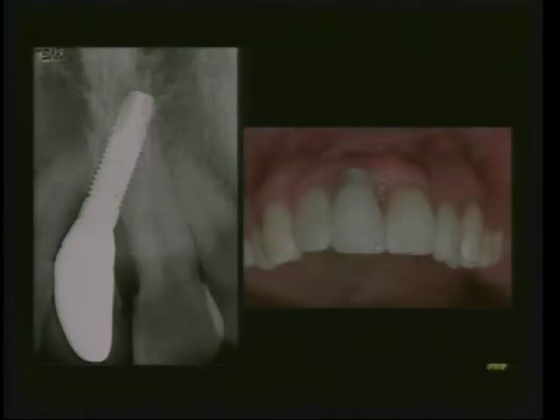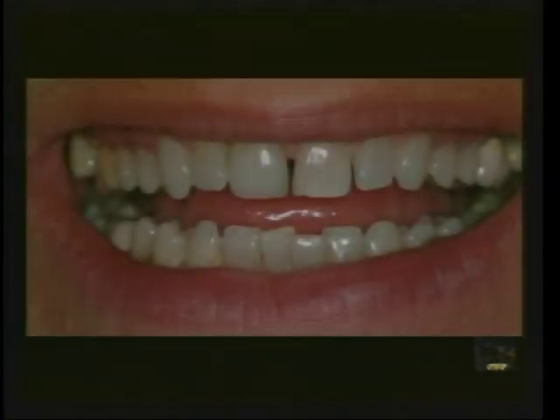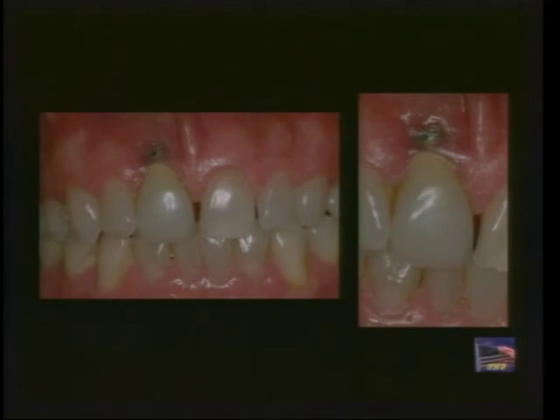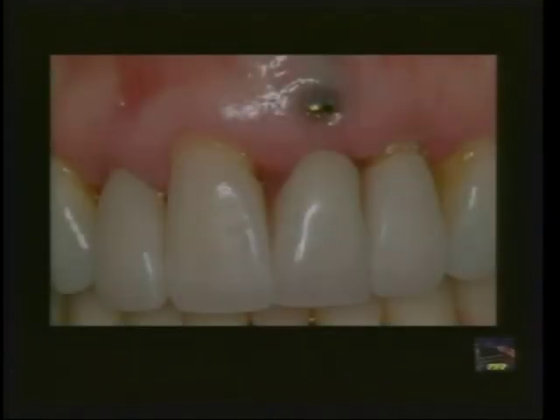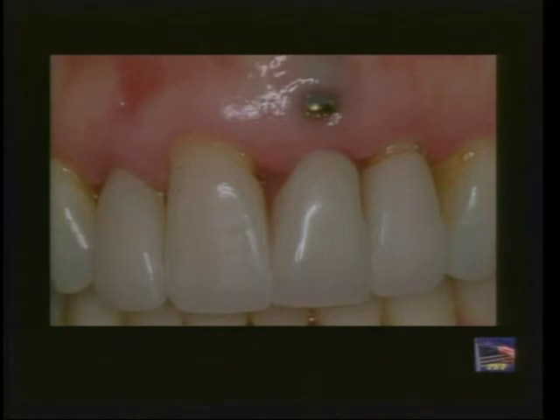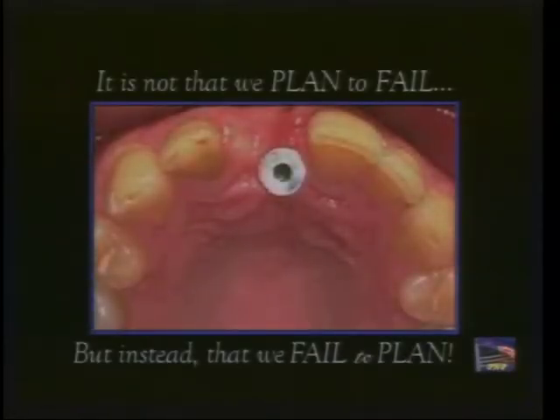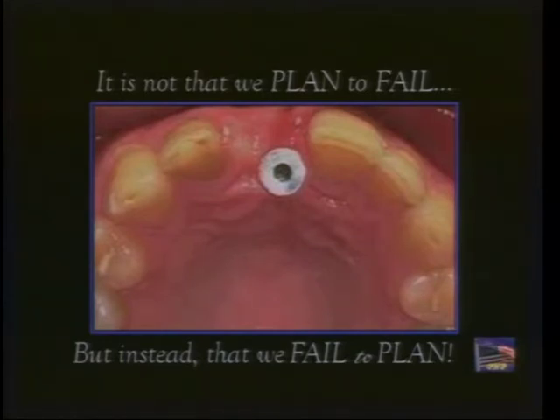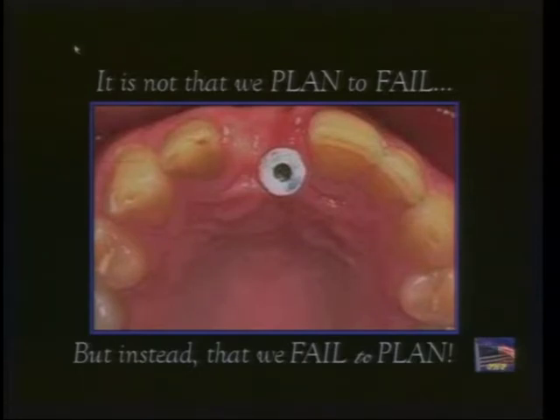A fairly easy correction is possible with an angled abutment, but this shouldn't happen. Another case — where a powerful attorney has something like this occur — can be trouble for all of us as implant surgeons. A case where the porcelain work looks quite nice, but as you reflect the lip, because this implant was placed slightly facially, subsequent gingival recession has occurred, making it very hard to recover from. Another example of planning deficiencies leaving an implant that is non-restorable. As I often repeat: it's not that we're failing or planning to fail, it's that we're failing to plan. With all the advances in guidance today, we can feel comfortable and confident before we lay our hands on the patient.